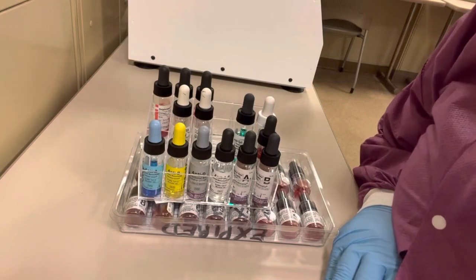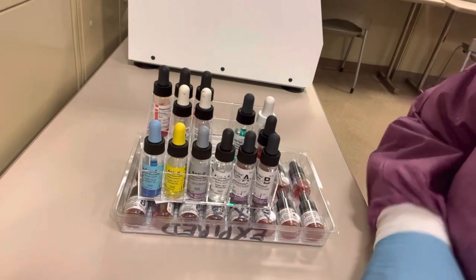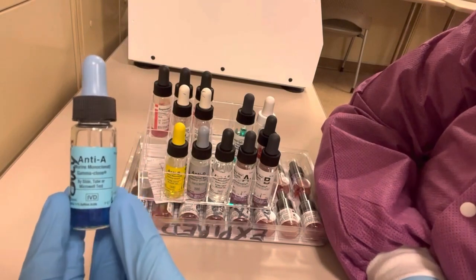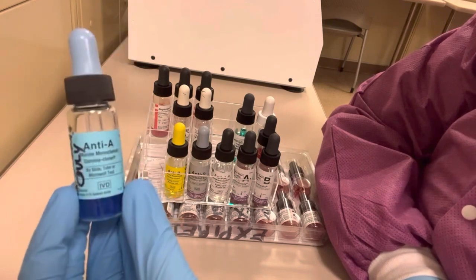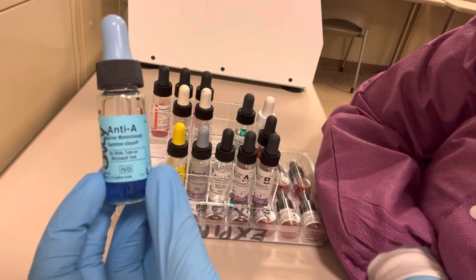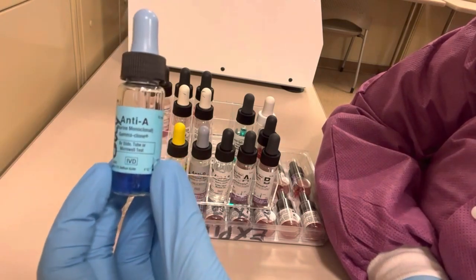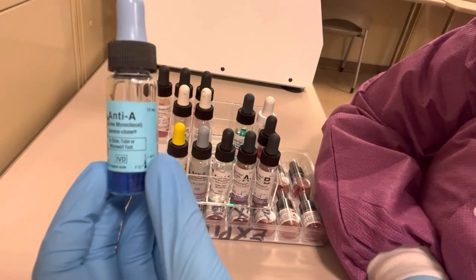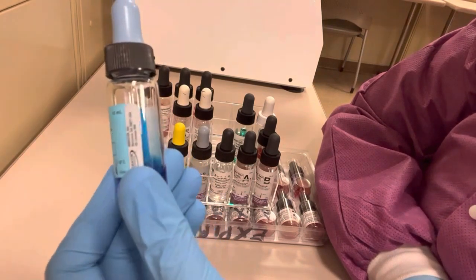The first reagent is anti-A, used in red cell determination of the ABO blood group — specifically in the forward typing or front typing of ABO typing. This contains antibodies toward the A red blood cell antigen, so if the patient's red blood cell suspension agglutinates with this reagent, their red blood cells have the A antigen. This reagent is always blue in color.